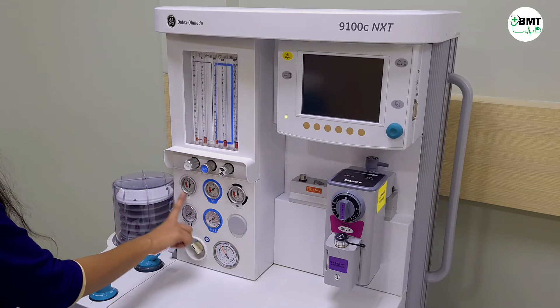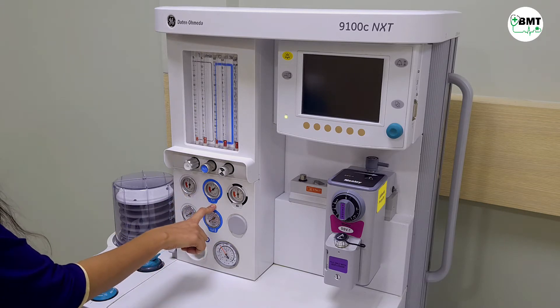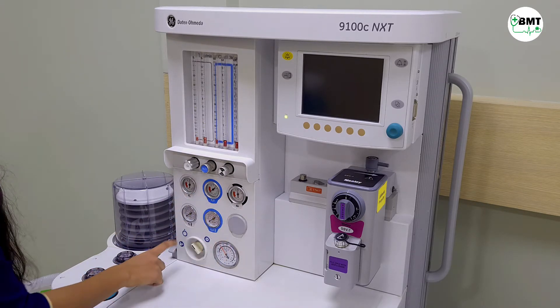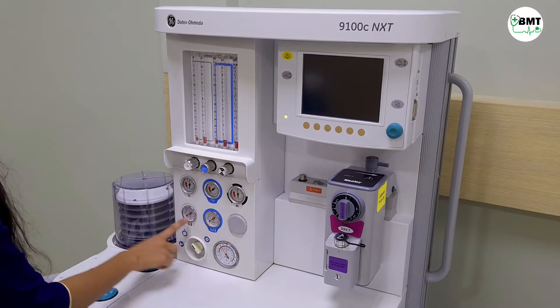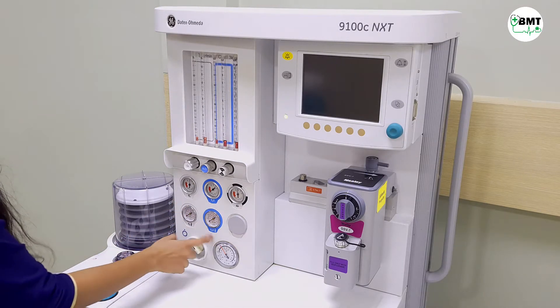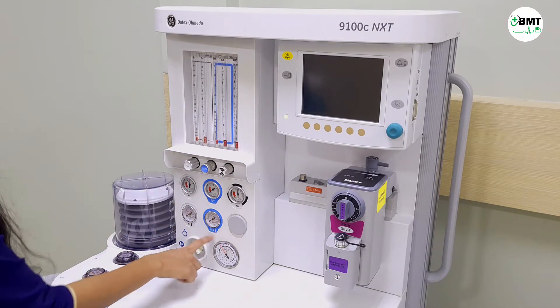This is the O2 pressure gauge. This is nitrous and this is for air. These two — this is for the O2 cylinder and this is for the nitrous cylinder.